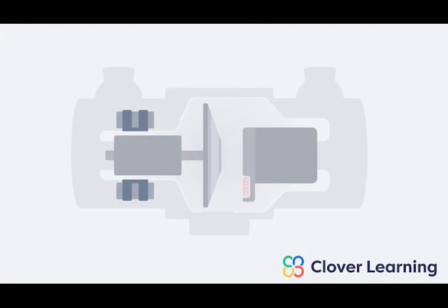There's three major components of the induction motor assembly. To start with, we have the stators. These are electromagnets surrounding the rotor. They're activated in series to induce the turning of the rotor. And that's the next component. We call this part the rotor. The rotor rotates. It's the tube shaft that's attached directly to the anode disc. And then the last part is the bearings that are in between the rotor and the rest of the x-ray tube.